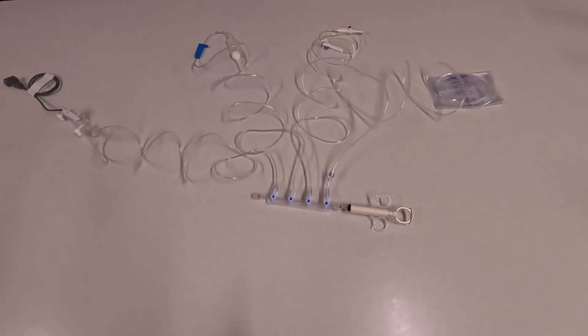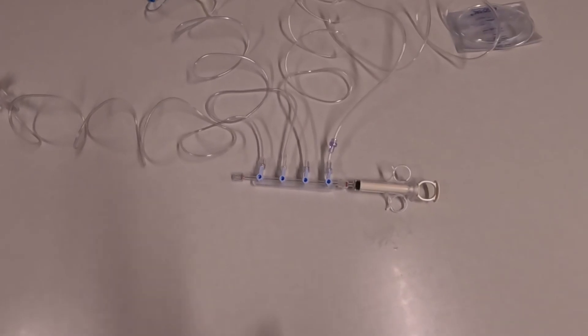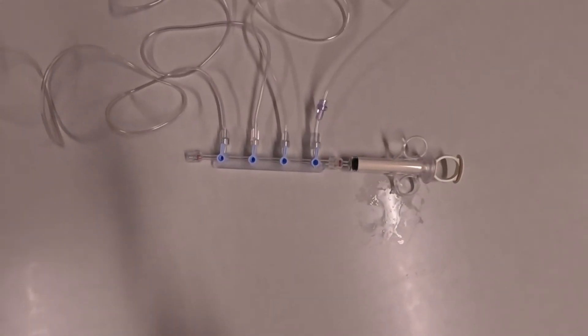The benefit of a manifold is you can have all your sources connected and you can change the inputs depending on what you need without having to undo or reattach the tubing.